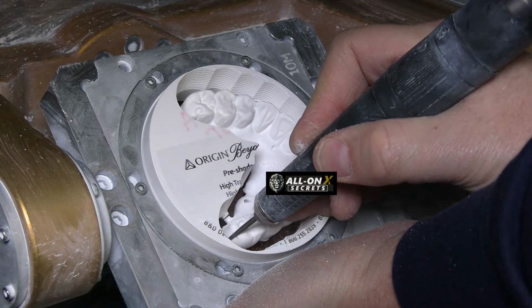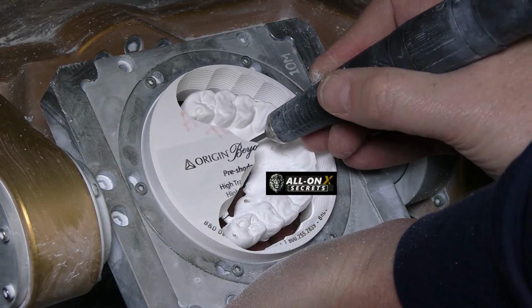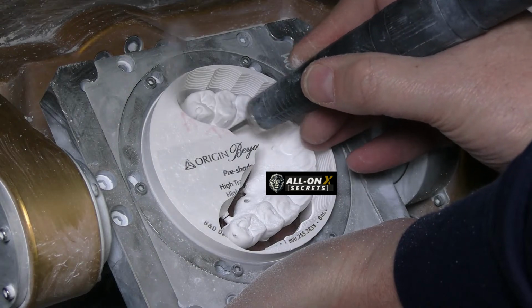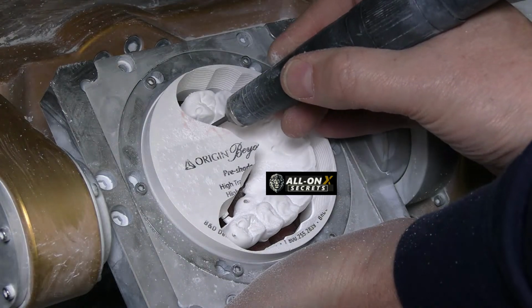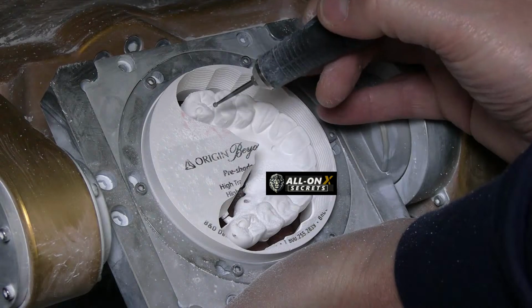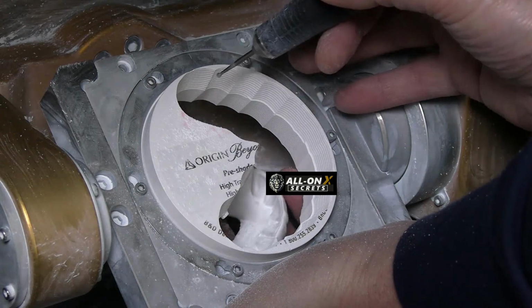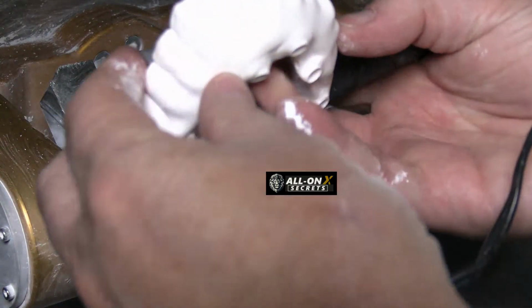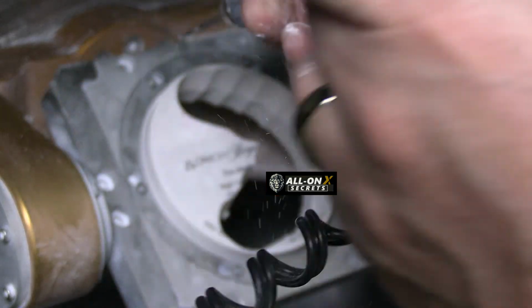I like putting on the back also the struts on the paddle side, because the nice thing is you don't hit the teeth in the front if for some reason you're trying to cut it out. Look, this only has one strut right here in the back, and it's still holding. It's pretty amazing. So do that, and it falls out. Make sure you have your hand underneath it. Pretty nice.